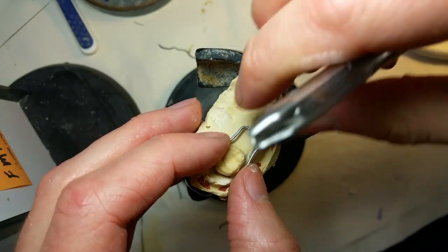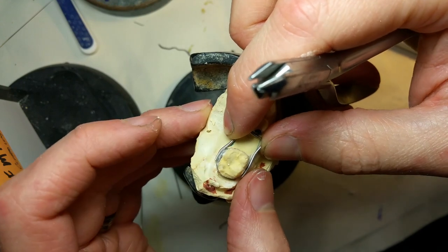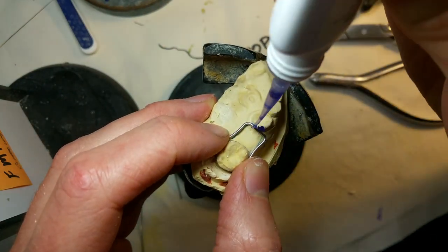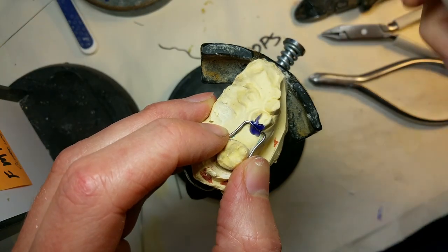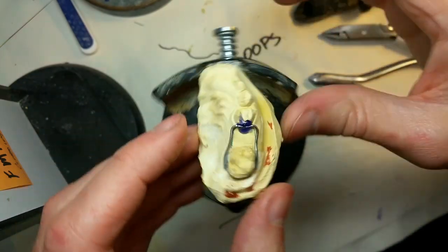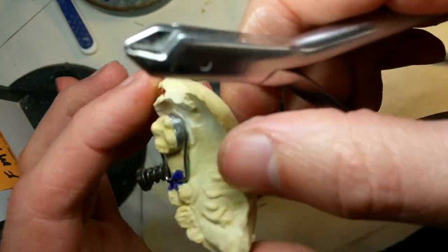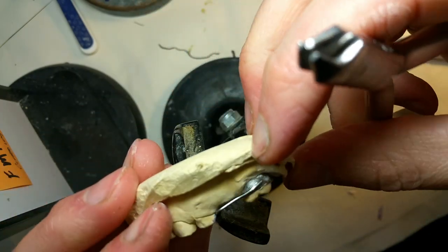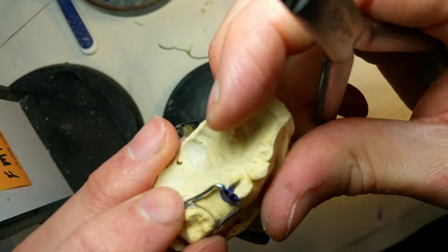I'm contouring it down the arch some more, checking, making sure it's still touching the band. I think I'm pretty close. There's the Zap-It application. We stopped zapping right at the contact point, because that zap is pretty tough. It's great for soldering — I used to use wax and really had to heat shield to get it off. With this I can actually make some last-minute adjustments, like correcting that wire that was too high on one side.